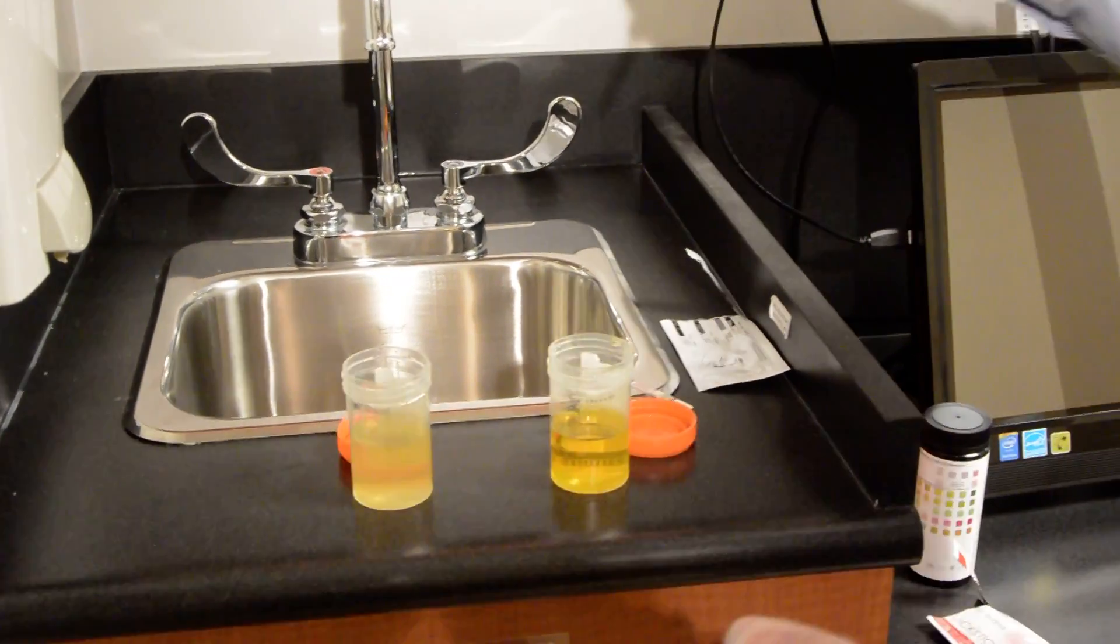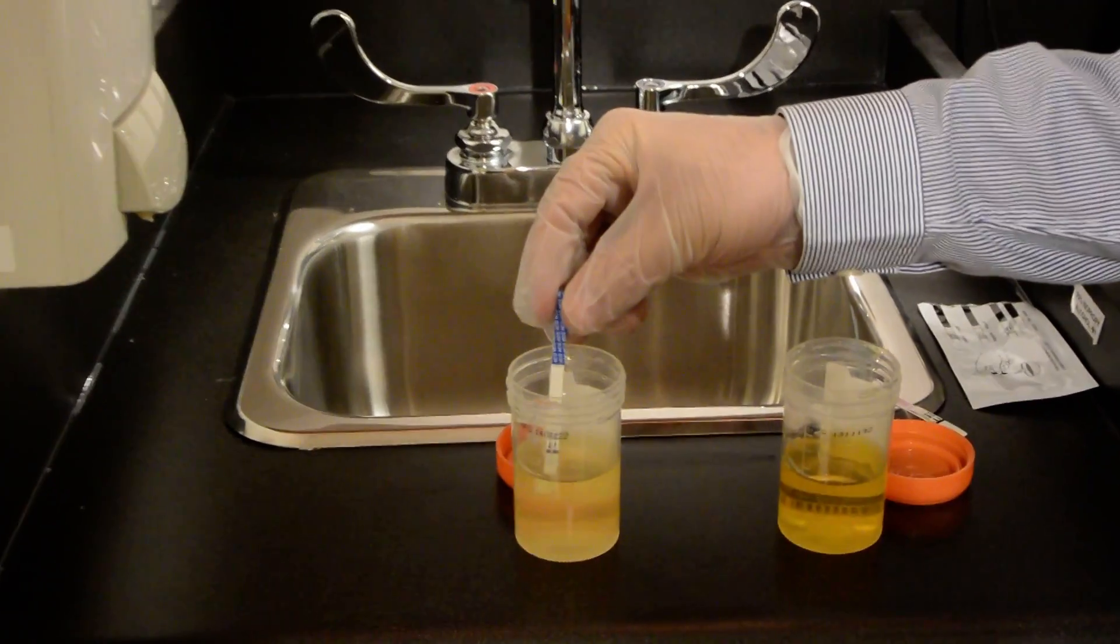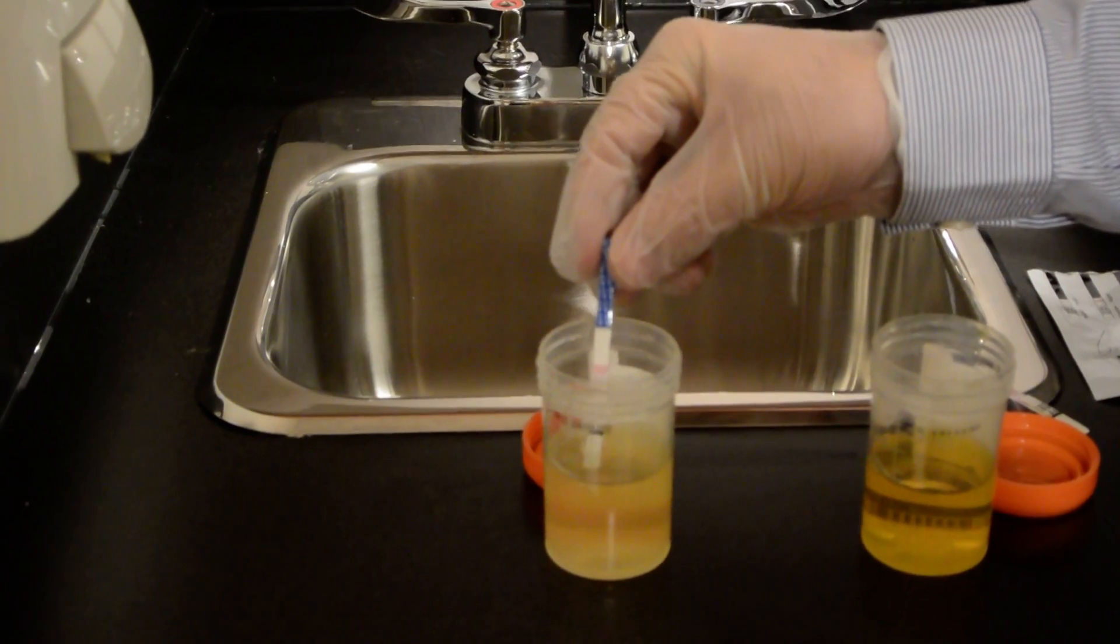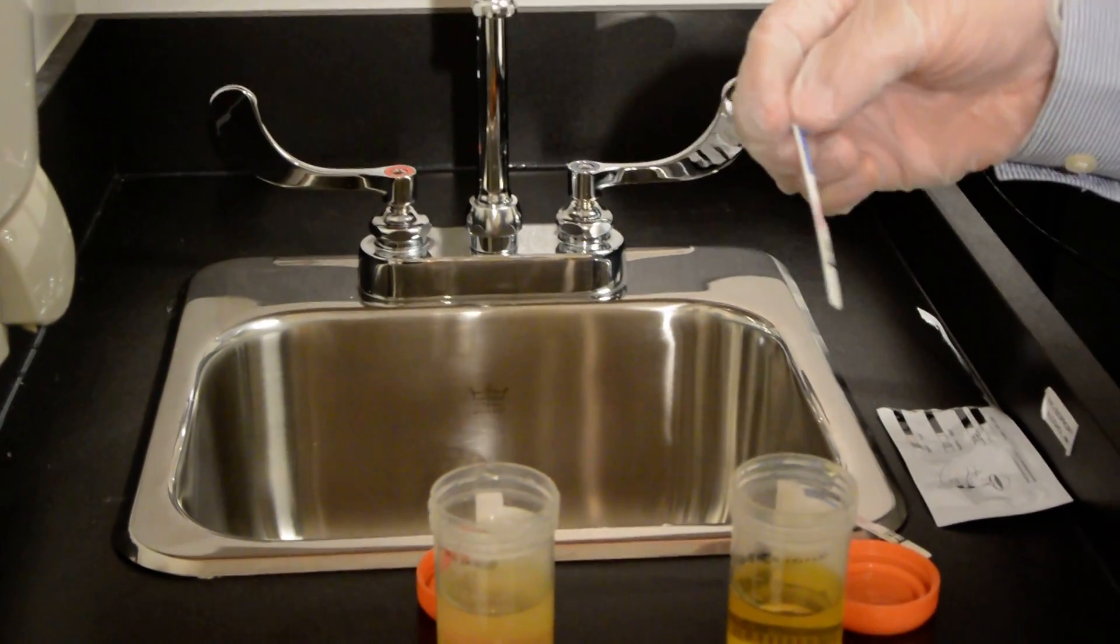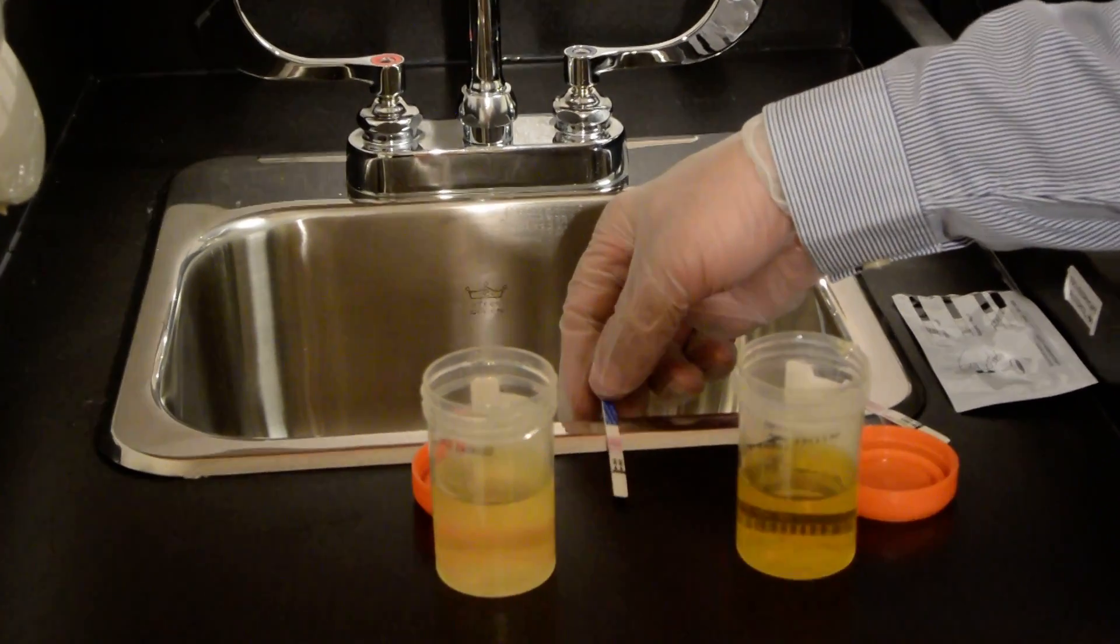Same thing. Put it in. Not higher than the max line. Let the urine diffuse. And we'll wait a little bit with this one.